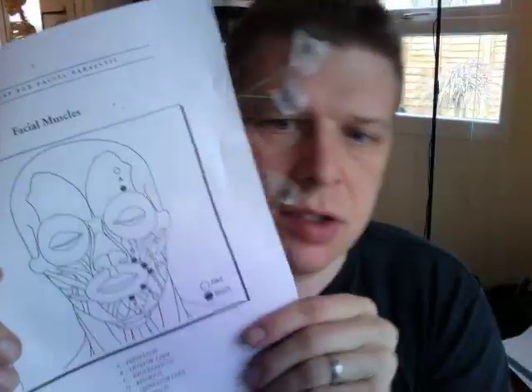So I've attached the electrodes to my face. It's a little bit more awkward than doing it in front of a mirror, trying to use the screen on the video. Not quite as accurately positioned - this should come down. I've actually got information on where to position the electrodes, so I'll post that on the website as well so you can download it.